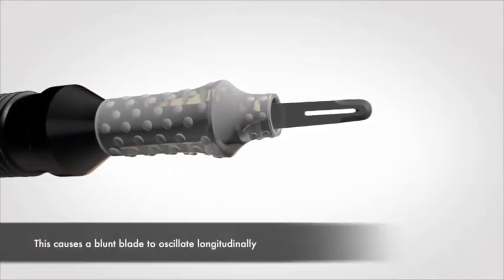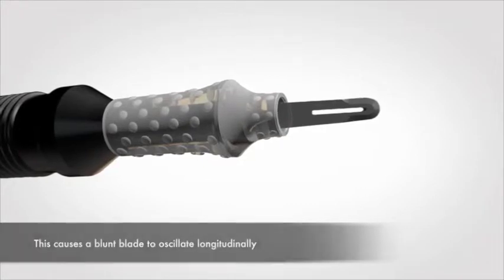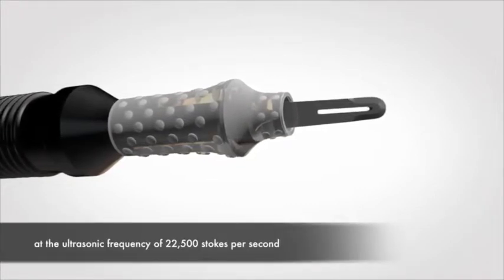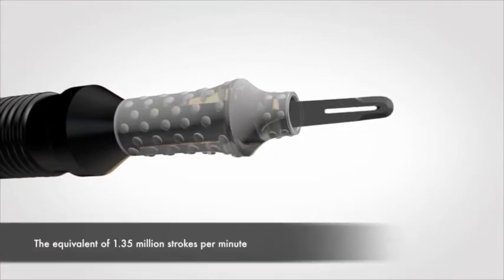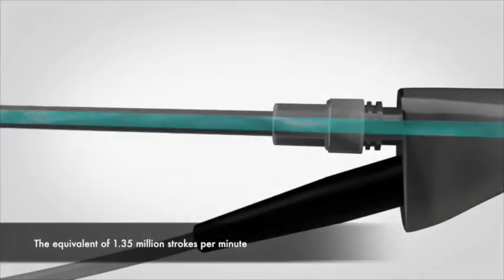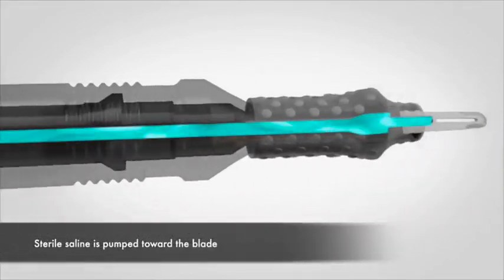This causes a blunt blade to oscillate longitudinally at the ultrasonic frequency of 22,500 strokes per second. This is the equivalent of 1.35 million strokes per minute. Sterile saline is pumped toward the blade.